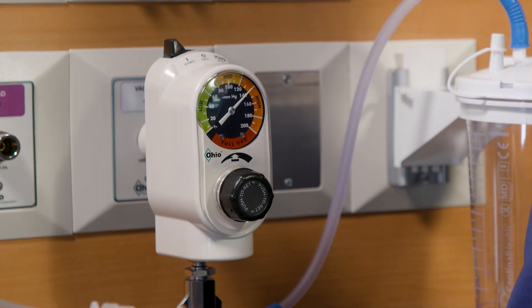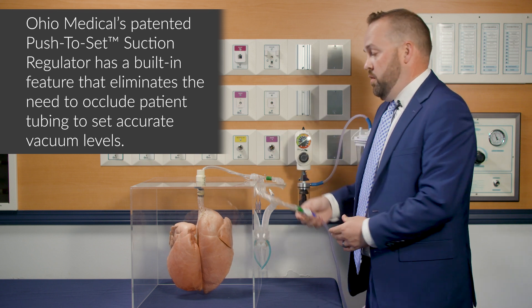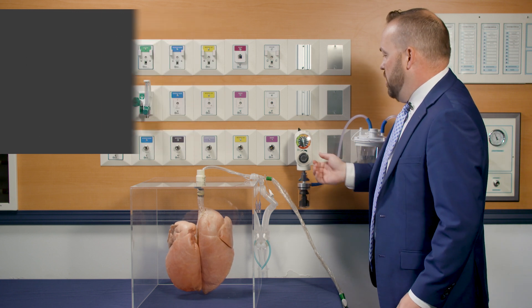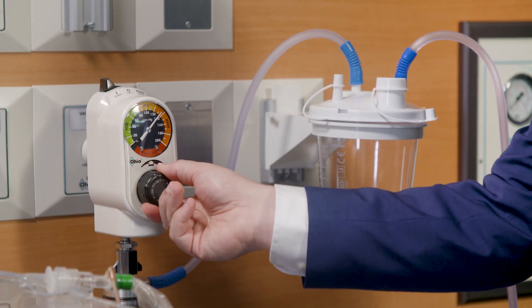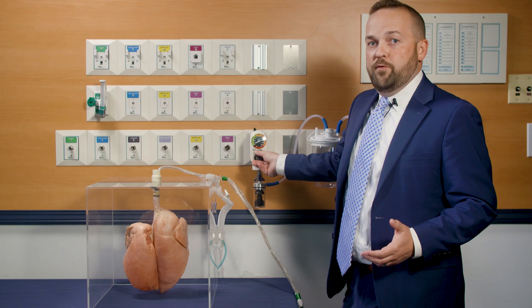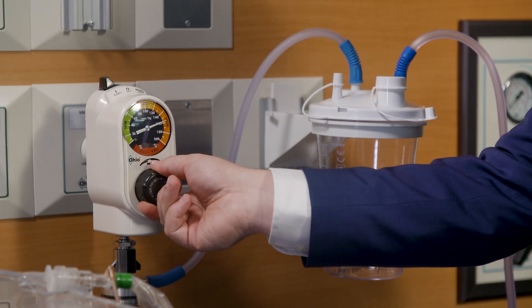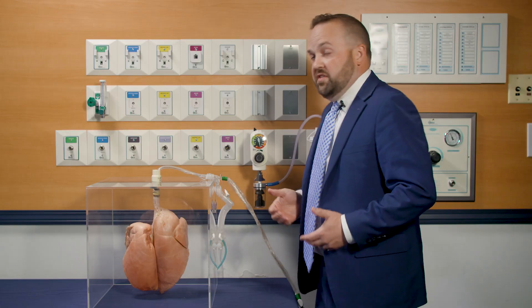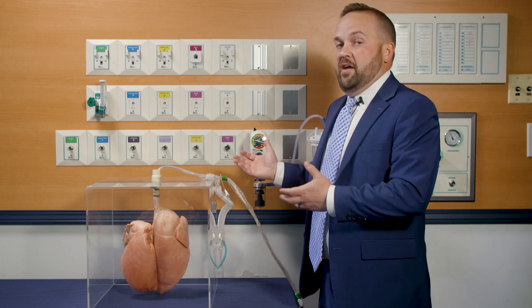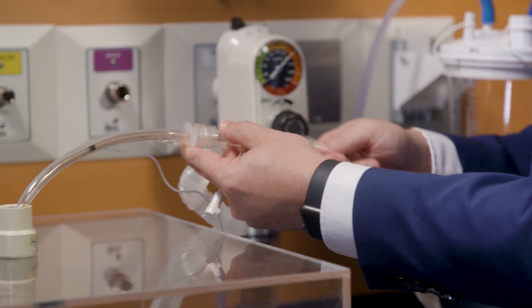Ohio Medical has patented technology called 'push to set.' Rather than using occlude to set, you can keep your appliances all intact without taking any tubing away. You power on the device, and once powered on, you can't even turn the knob without pushing the button in. Once you depress the button, you can adjust the suction pressure — it's already done the occlusion procedure for you. So I can adjust and set it to 140 as long as the button is depressed. It takes the complete occlude-to-set procedure away and makes it much easier for clinicians without having to move to the back of the bed. Now with pressure set at 140, let's demonstrate what that looks like when we suction the pig lungs.